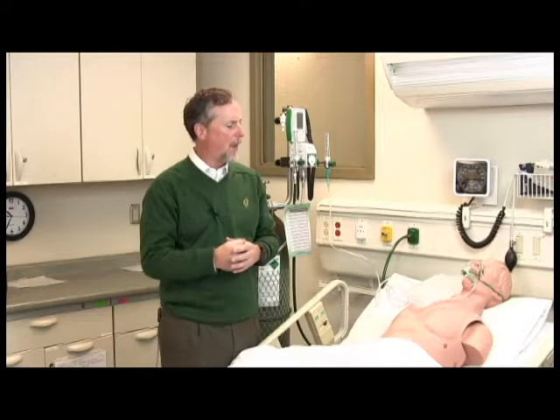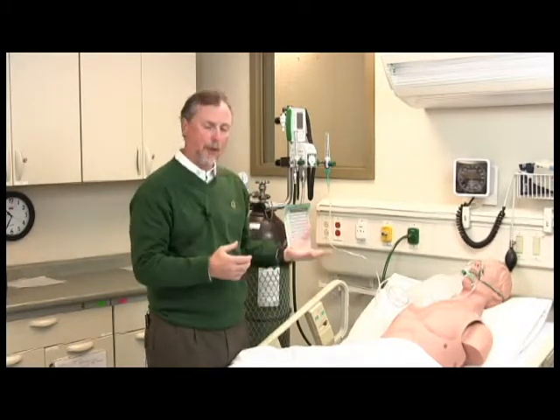Helium is an inert gas. It's colorless, odorless, tasteless. It really doesn't cross the alveolar capillary membrane, so it is inert. It stays in the lungs. So there are very few side effects to using Heliox. The one side effect that people talk about is a high-pitched voice, and that's due to the density. As the gas is flowing through the vocal cords, it makes your voice a different pitch. But the one thing to note is that the thermal conductivity of helium is a little bit different.